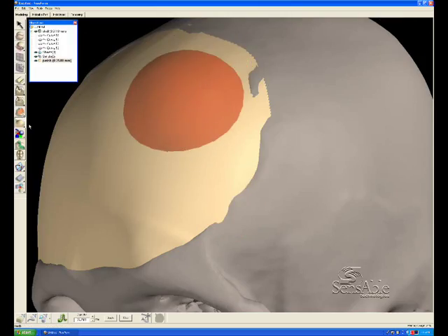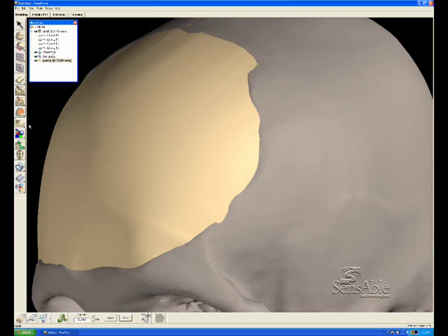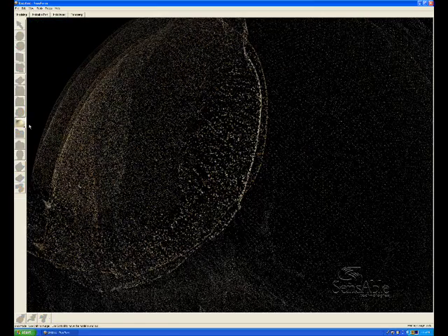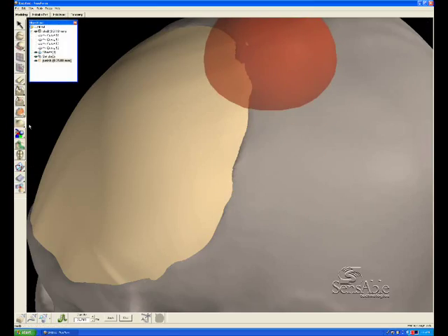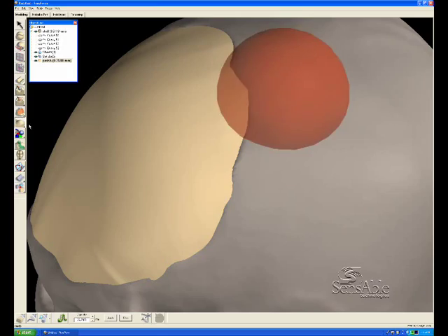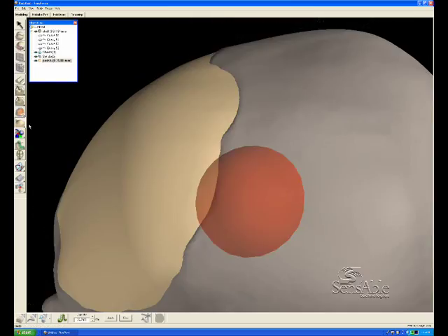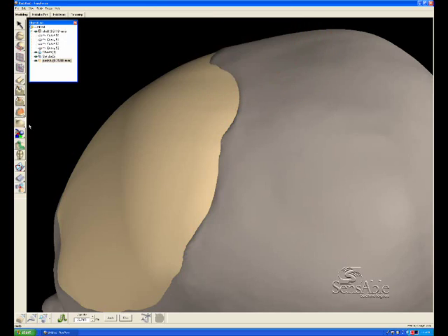This is another reason why the patch was created hanging over the beginning of the defect area rather than starting directly at the top of that hill that goes down into the wound. We wanted to be able to go in with the tug tool and pull the patch down so it's right at the beginning.